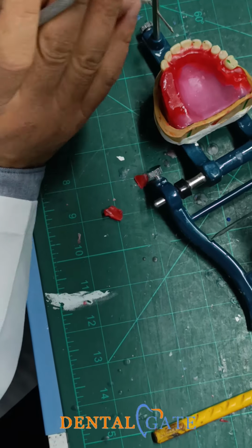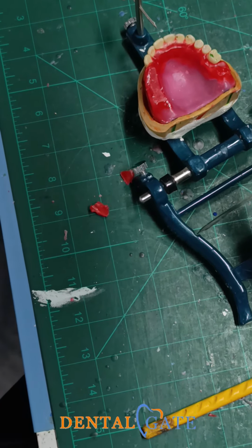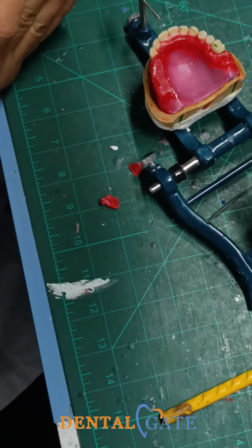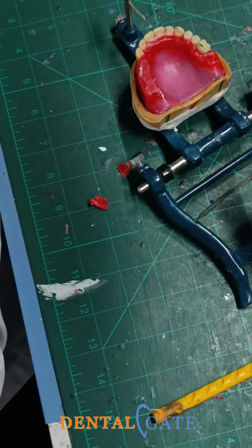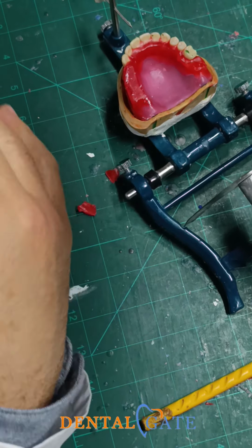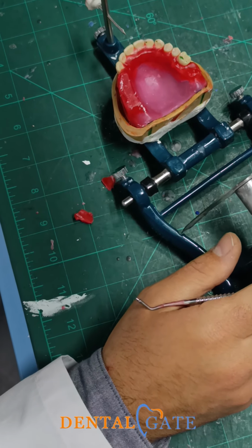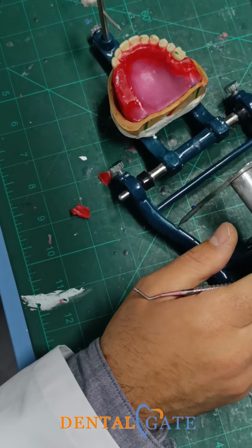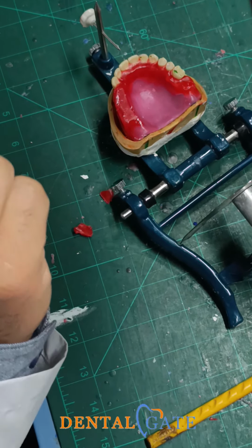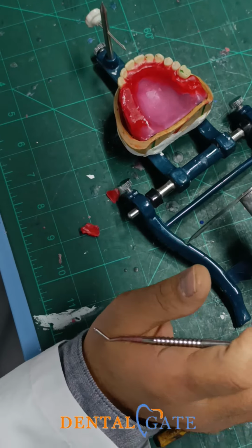I will connect the posterior and anterior in the advanced feature. But now I need to establish the occlusion. Okay? So as students, as beginners, with this practice, take it easy. There are no mandatory rules to perform all criteria. Now we will start to make the practice. Okay? This is what I mean. This is the first one. The other one, academically, if you have a small arch compared to the lower, you can make the spacing to compensate this within the actual patient.